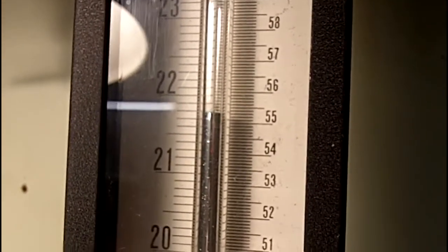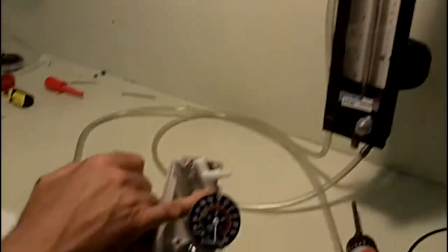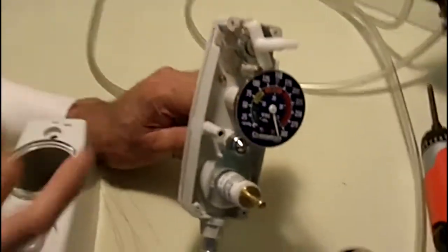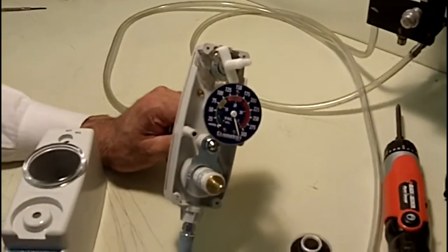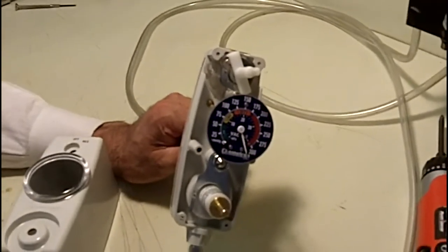So you can see the use of this secondary relief valve greatly limits the amount of the potential vacuum that would be delivered to a patient should a regulation mechanism fail.